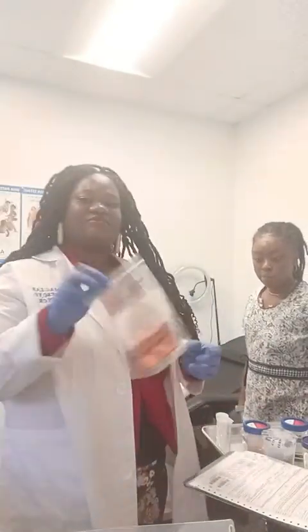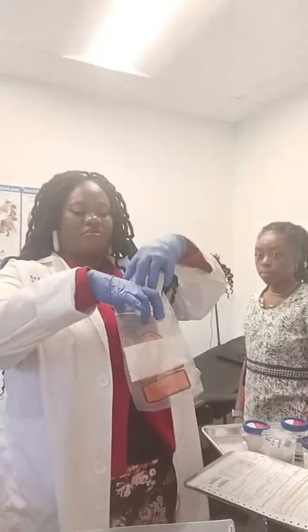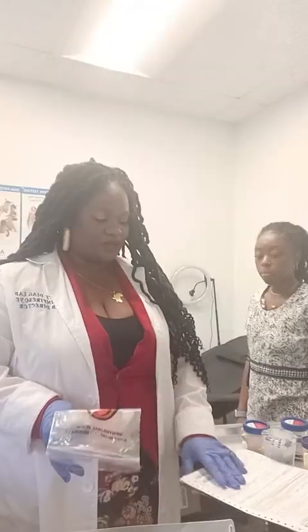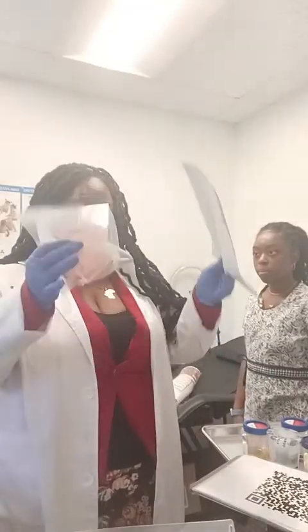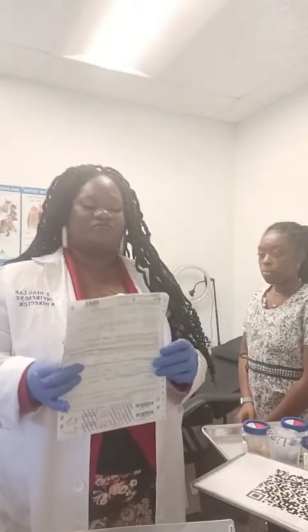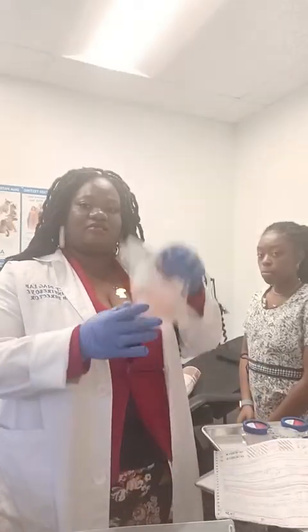What I'll do, put the two split collections in the specimen bag. It goes in the specimen bags. All right, put that in. Boom. Carefully make sure it's not wiggling around. What I usually do before then, I'm going to make sure copy A, which is the lab copy, goes in the bag with the specimen, facing this portion outwards, so by the time this bag gets to the lab, they can easily scan and receive your specimen. Fold this in half, put this together in this bag.